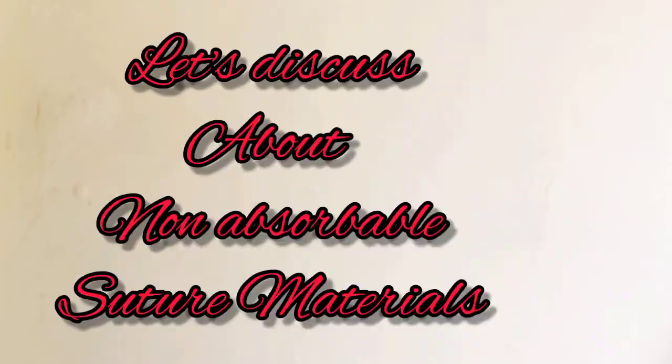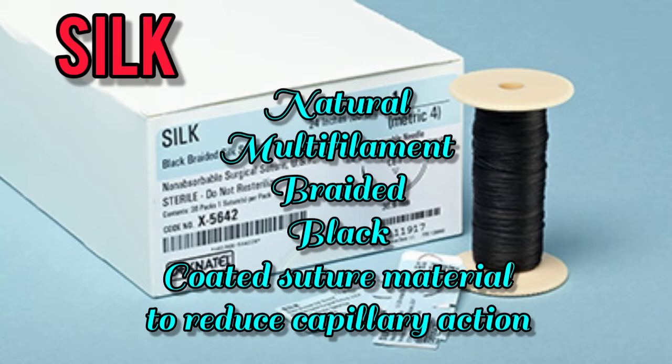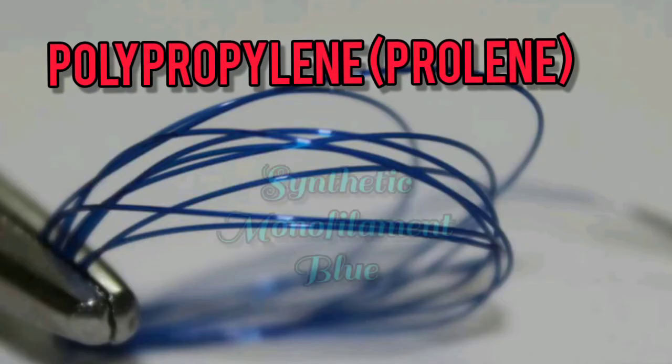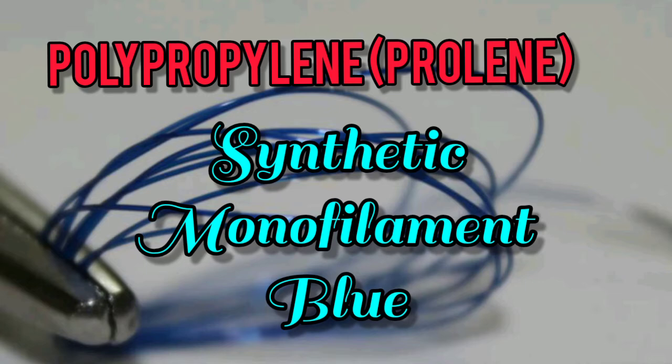Non-absorbable suture materials: silk is a natural multifilament braided suture material, coated to reduce capillary action. Polypropylene, or prolene, is a synthetic monofilament suture material and is blue in color.